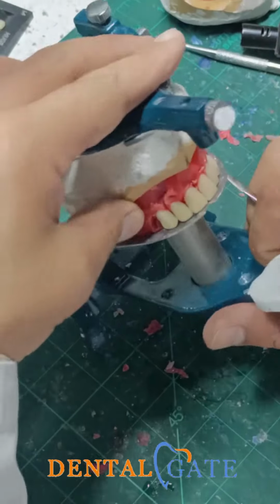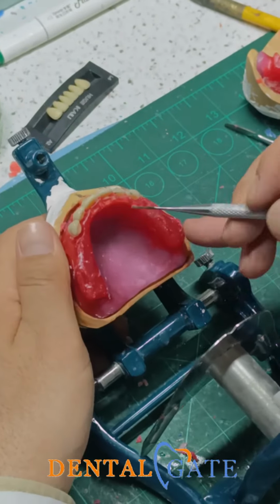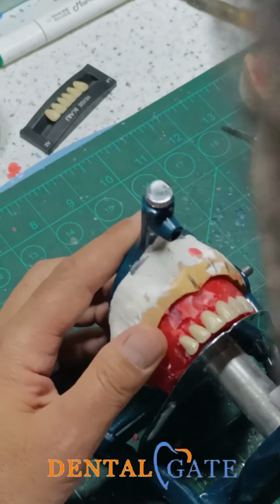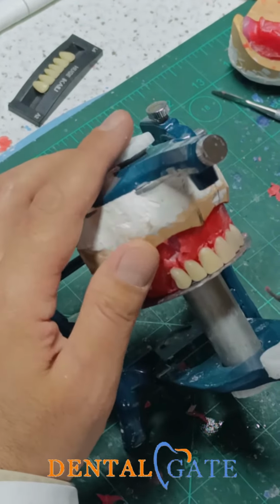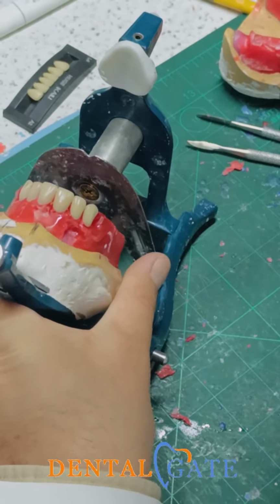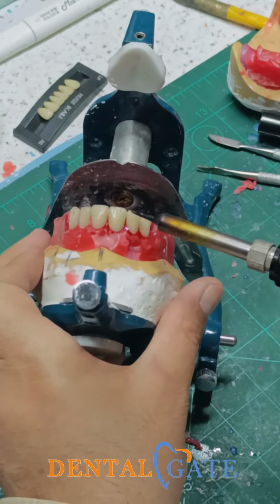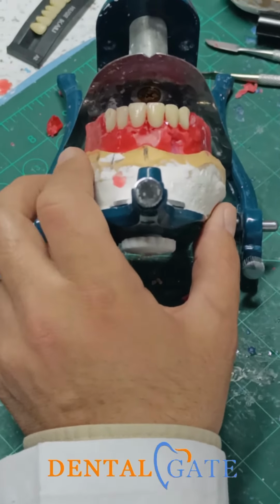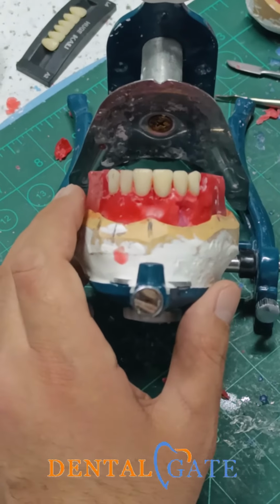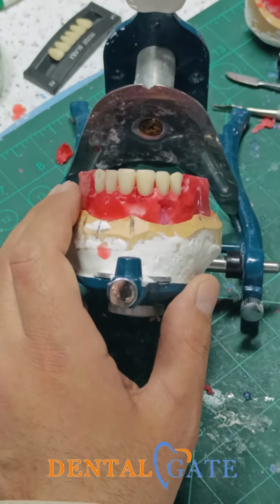And now make a final check, and you can see the curve will follow the canine corner in a proper position, and there is no problem with that curve. So make a seal, but be sure the teeth should not be burnt out. Make another seal here. Be sure the contact area is in the comfort zone. You know what I mean? Don't make the teeth, make just contact in the maximum coverage. Okay? And preserve the long axis vertically.